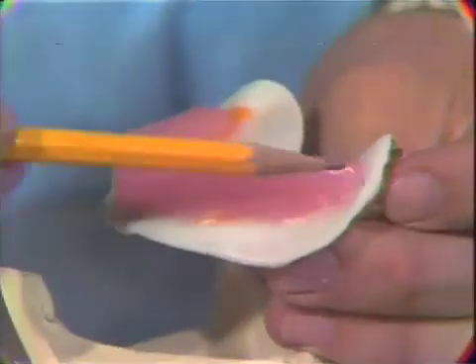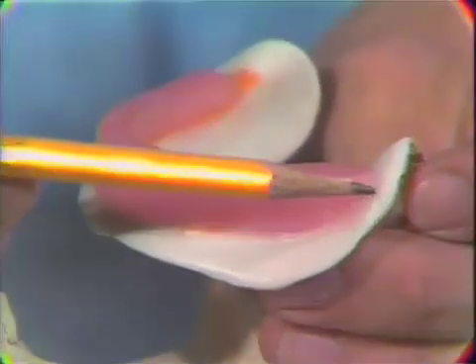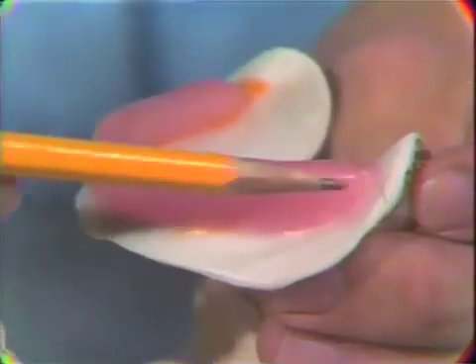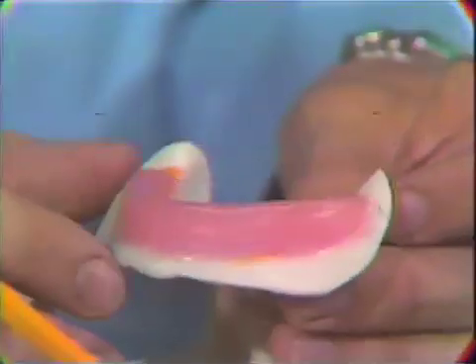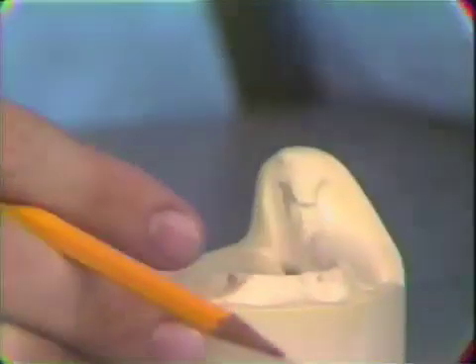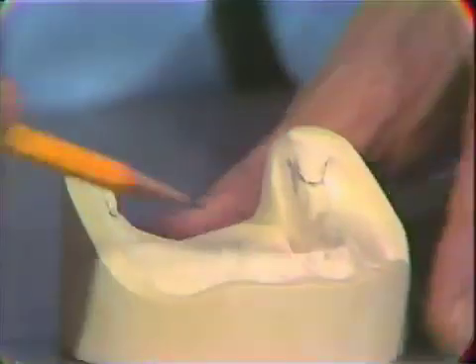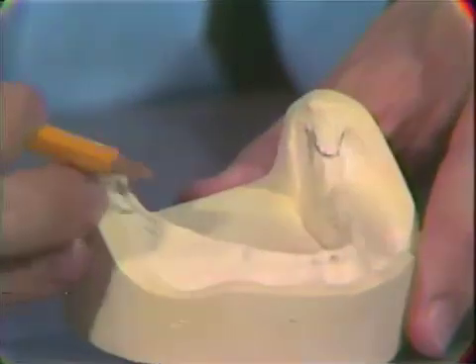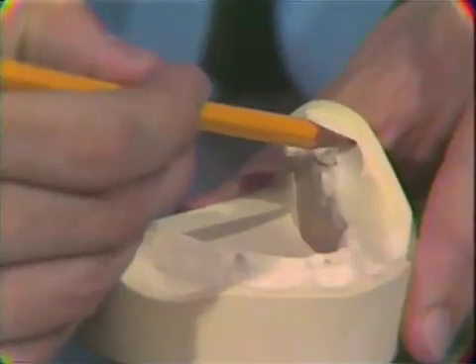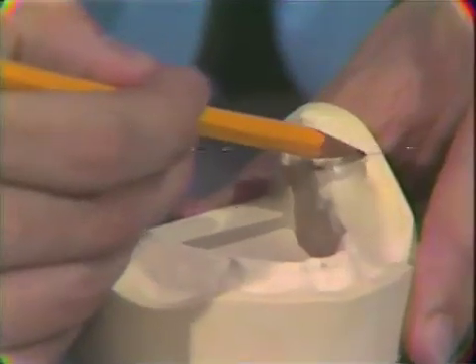The height of the rim is approximately a centimeter and it extends back so as not to exceed the height of the retromolar pad. Turning to our master cast, we look at the retromolar pad region — we have marked these two pads bilaterally and are going to extend a line out onto the landing area in the vicinity of the retromolar pad.